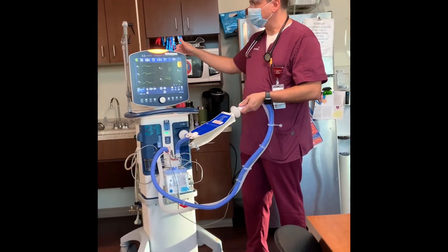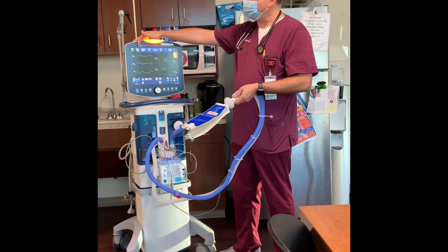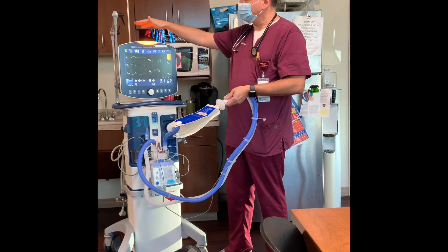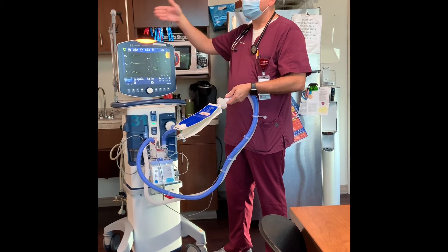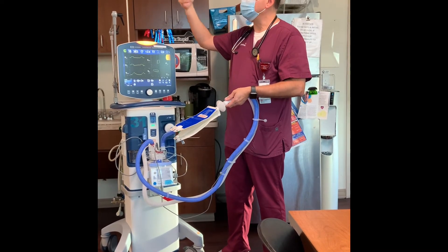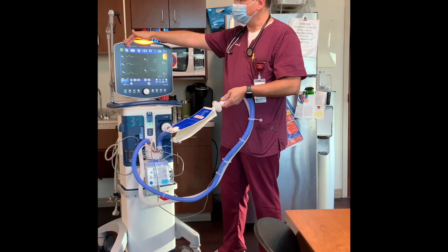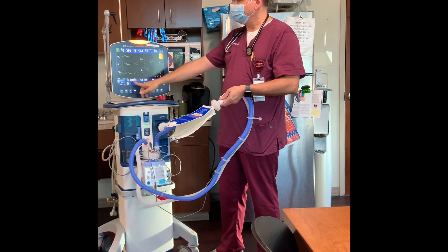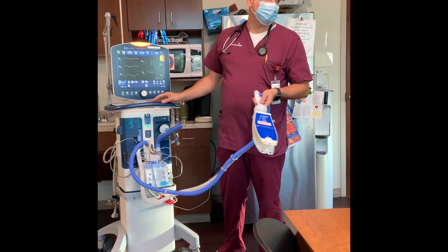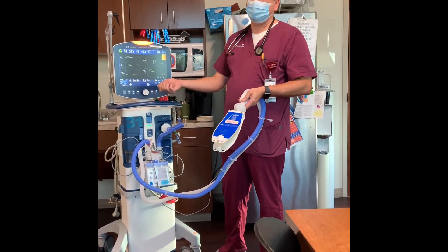For alarm situations related to peak pressure: if that peak pressure goes high enough, it will start alarming and progress from a low to a medium and then even to a high priority alarm, simply because it's taking too much pressure to ventilate the patient. The most common thing you'll do is suction.